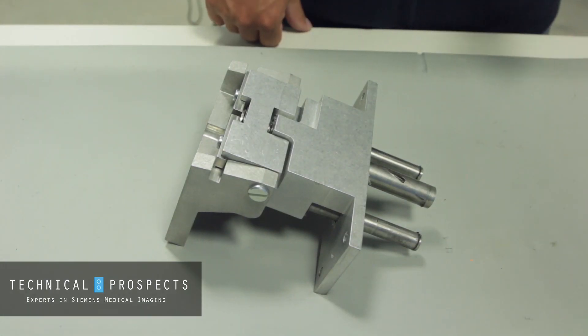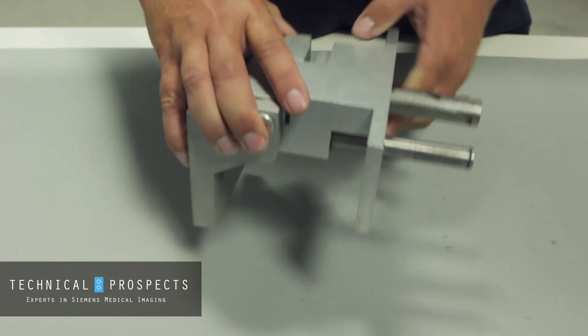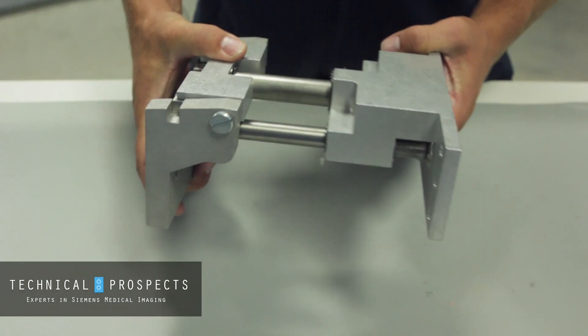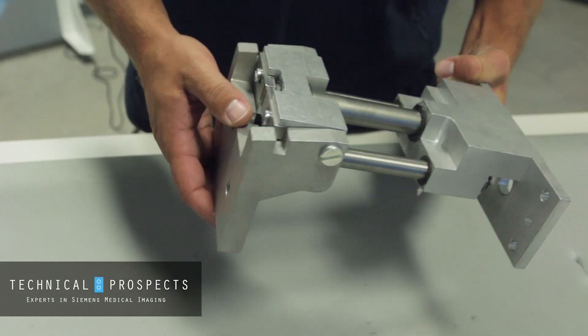In the top part where the cover slides out on the rod or shaft — right here, this is one that's out of a cover — the cover will not be able to come up at an angle until this is slid out all the way. This part actually goes on the front cover, and we'll show how this opens up in a second.